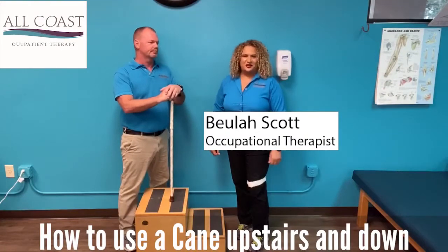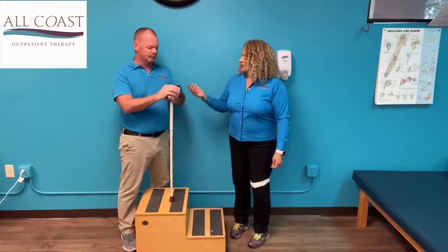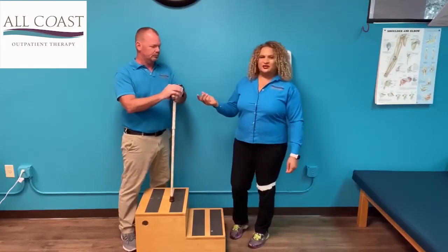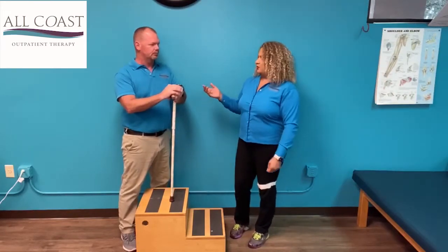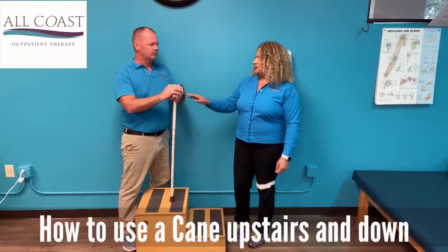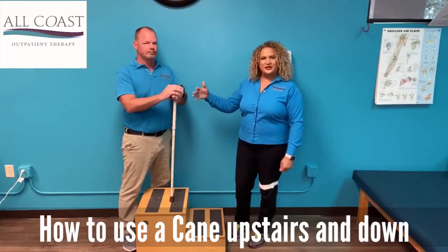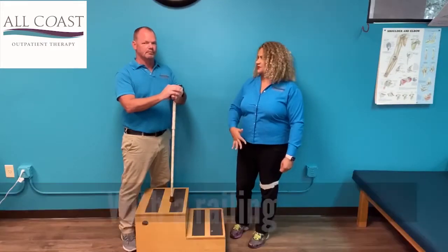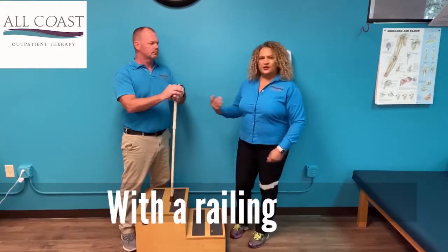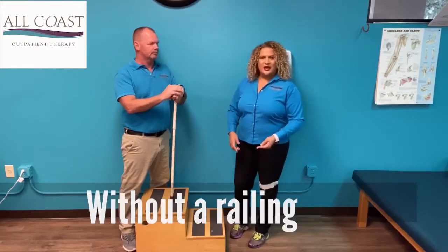Hi guys, Beulah Scott, Occupational Therapist, and Mike the Physical Therapist. Today we're going to be going over how to use a cane when you're going upstairs and downstairs with the railing and without the railing.